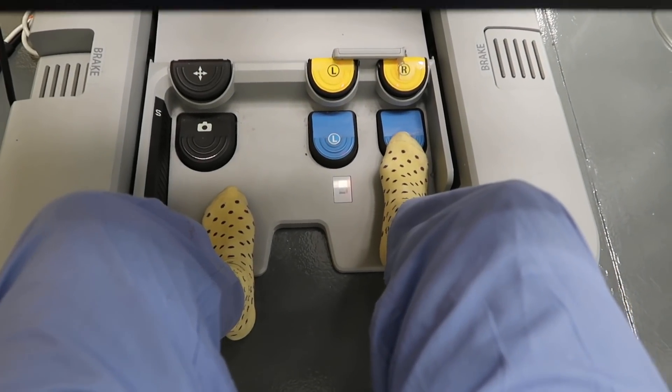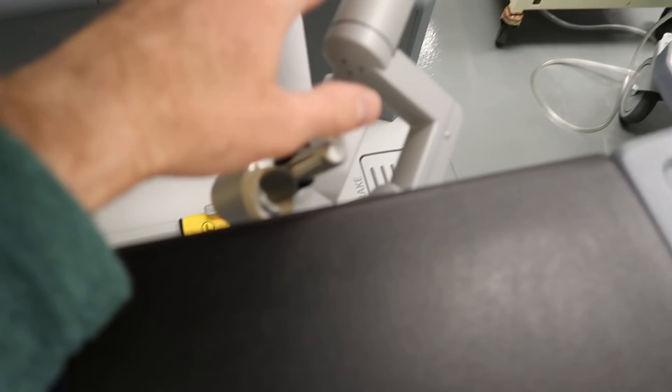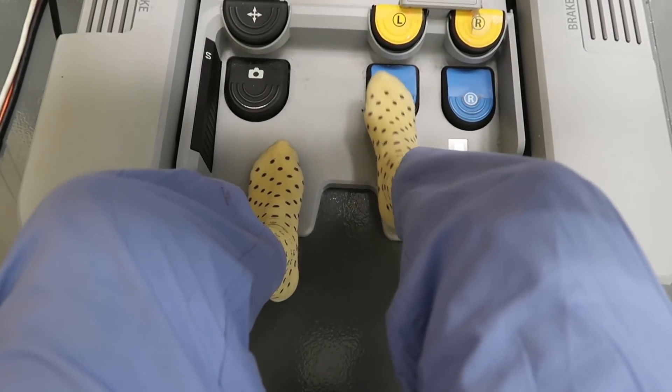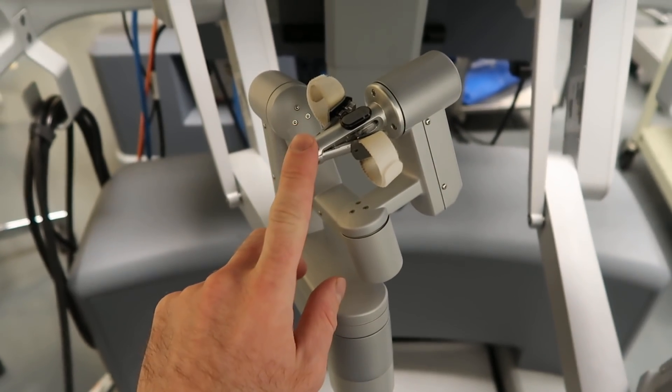This button here is for anything happening with your right hand, which is this one here, and then this button there is for anything you're controlling with your left hand.